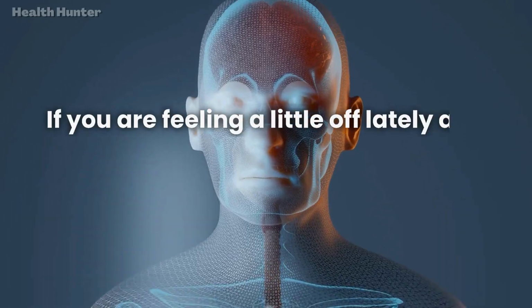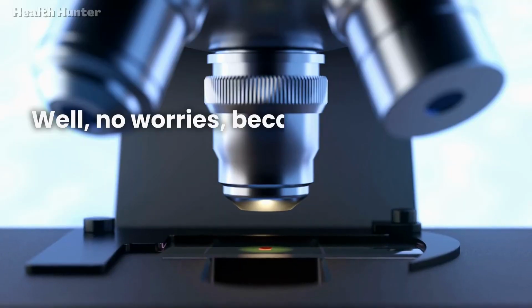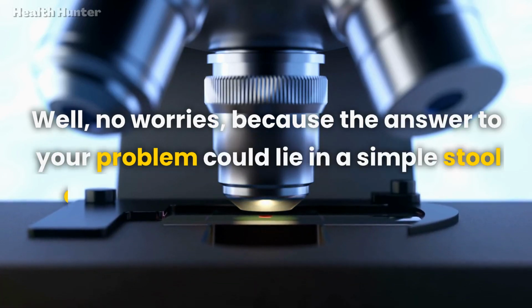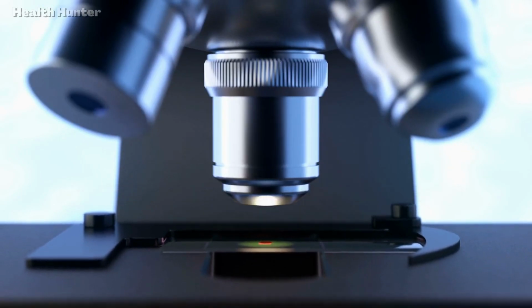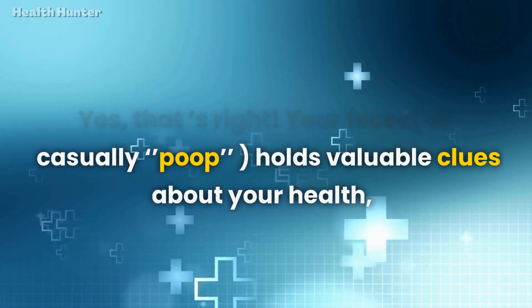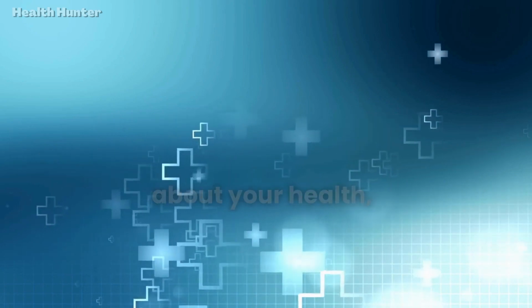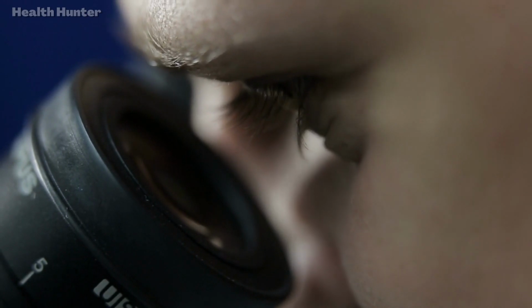If you are feeling a little off lately and unsure about what's going on inside your body, no worries, because the answer to your problem could lie in a simple stool examination under a microscope. Yes, that's right, your feces, or casually poop, holds valuable clues about your health. And in this video, I will be discussing everything you need to know about stool examination under a microscope.